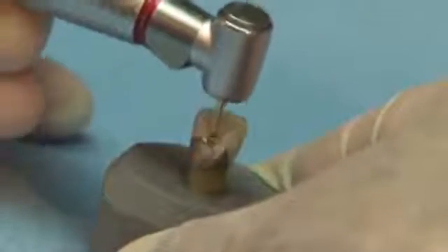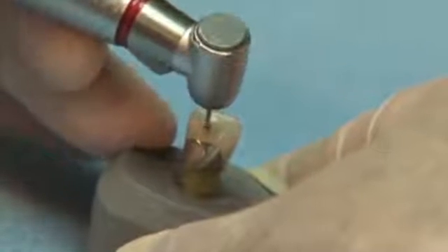It's easy to see why the Great White Burr is the number one burr in the world for cutting metal. Great White Burrs will cut all of today's dental materials with precision and efficiency.